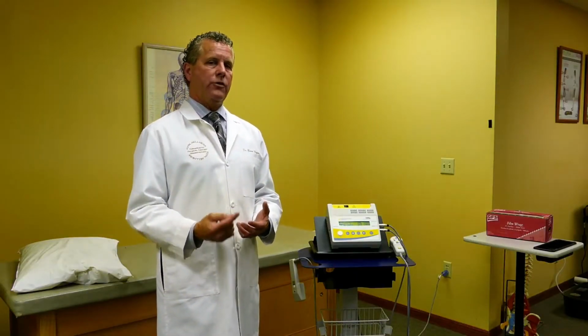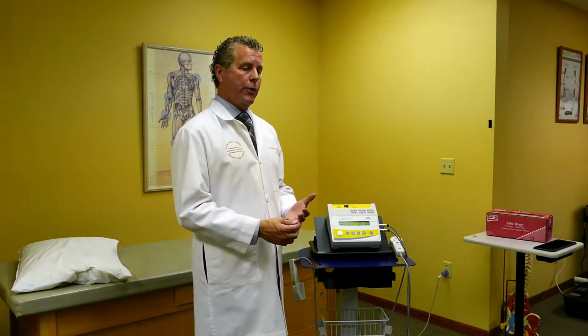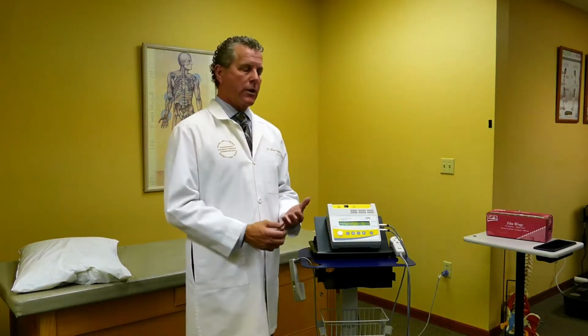We also have what we call a decade rule. This is kind of clinical pearl number 3. The decade rule is determining how fast the patient should see significant improvement. Now, I'm not saying the patient's pain will be diminished totally, but that they will see some improvement started. So the decade rule is for every 10 years that you're on this earth, it's usually 1 treatment. So if you are 30, we're looking at 3 visits. If you are 60, you're looking at 6 visits before we should see some significant improvement.